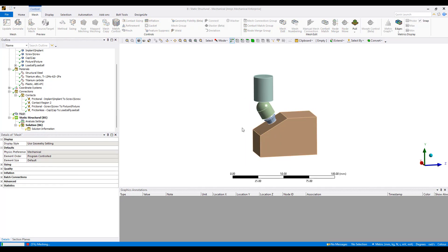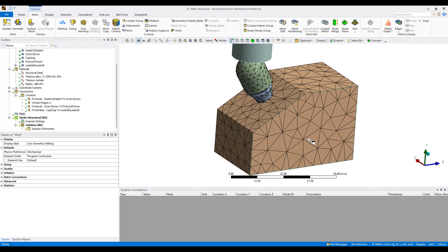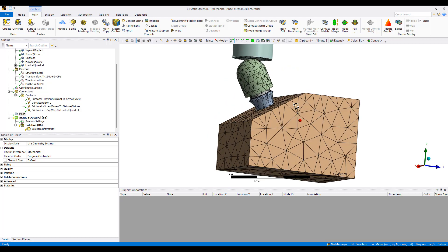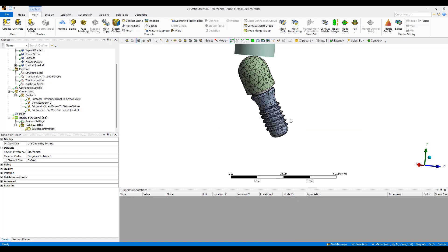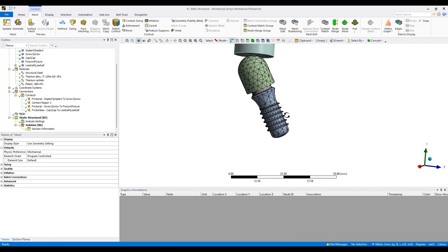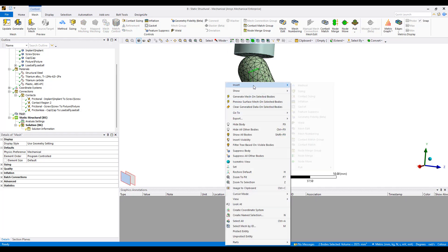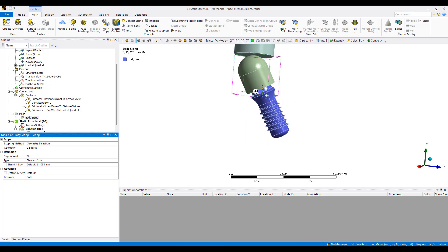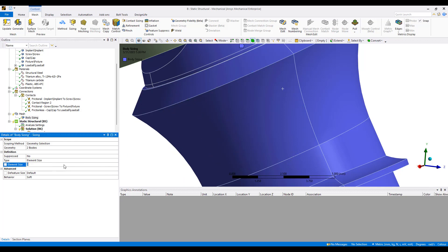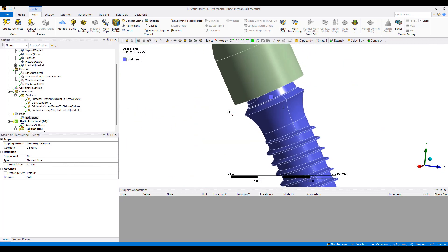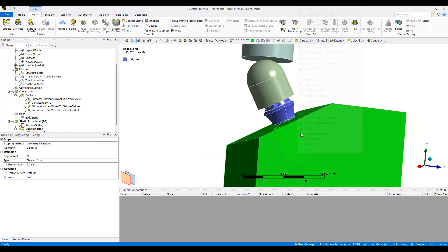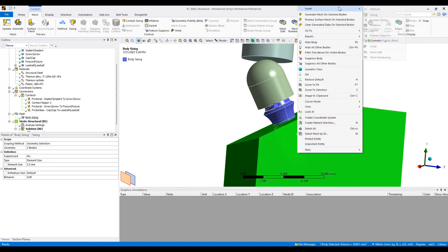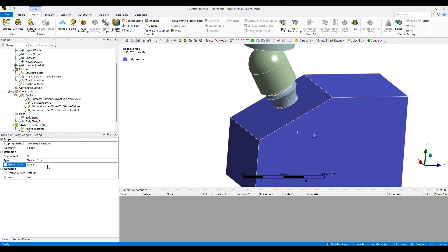Let's take a quick look at the mesh here. You can see the mesh is a little bit large on the structure side. The mesh is not bad here but it's still probably a little bit coarse. We can select these two parts, put in a sizing. That circle is how big the default sizing is for this, so maybe we cut this down to two millimeters. We can put in a sizing here too, maybe 3 millimeters or 5 millimeters, make this fairly coarse.